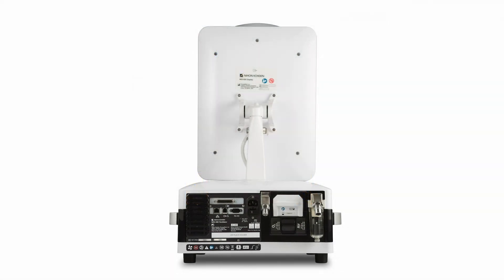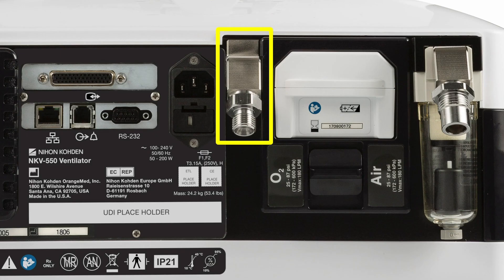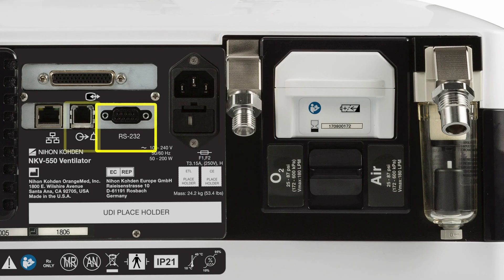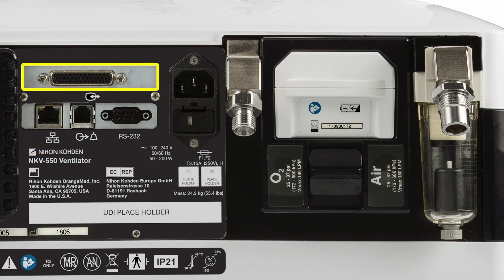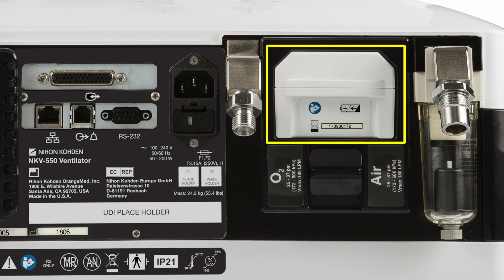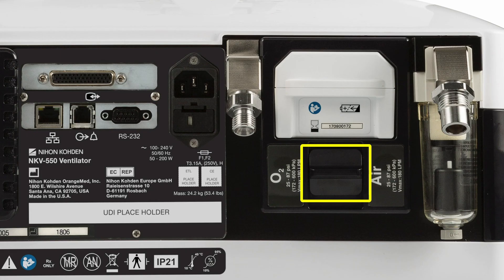On the back of the breath delivery unit are connections for the air and the oxygen gas supplies, the RS-232 serial port, the nurse call port, the ethernet port, the second graphic user interface port, and the extended battery which can be easily exchanged by pressing down on the latch release and sliding the battery out.